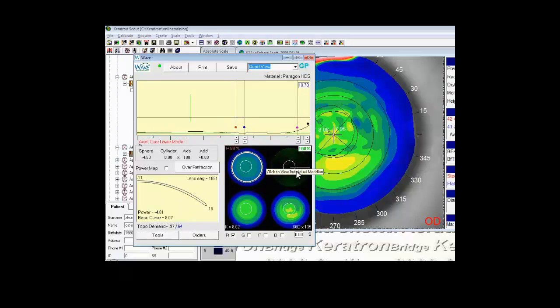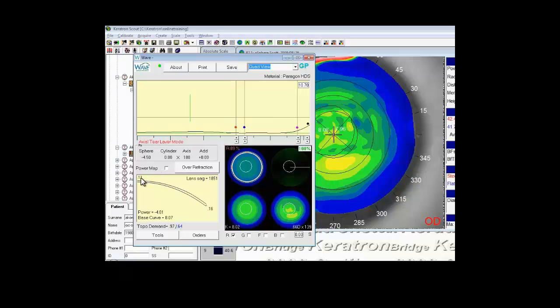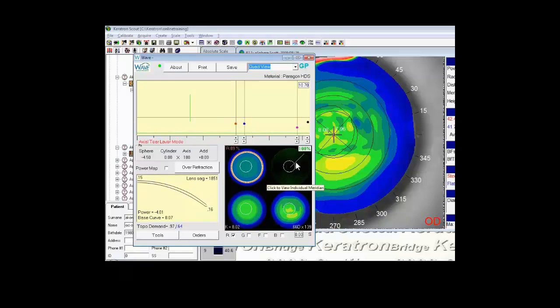And as it did that, our lens is almost complete. The final changes you'd want to make here are just to increase the center thickness so the lens will not flex on the eye, and then review the design to ensure it is satisfactory.